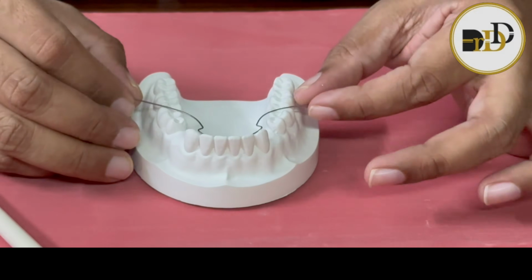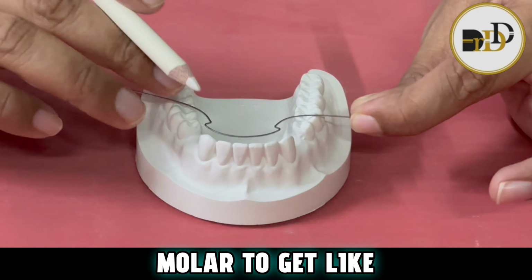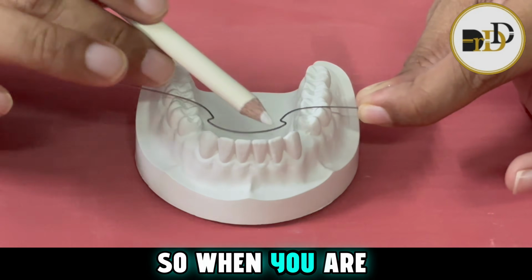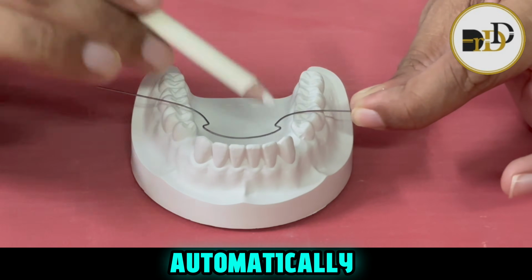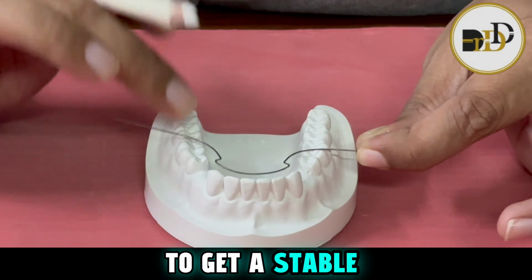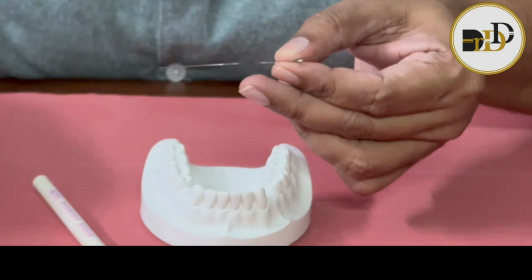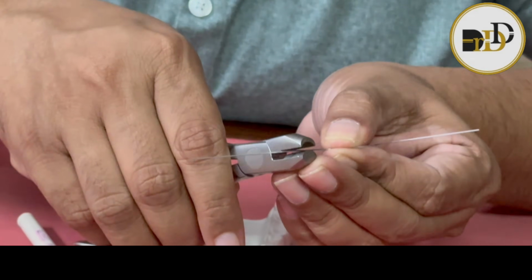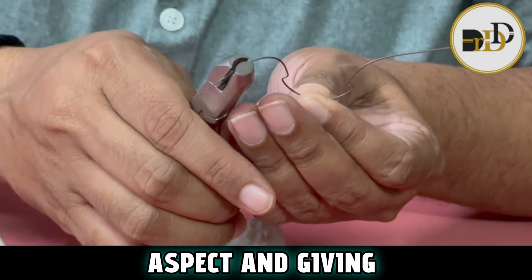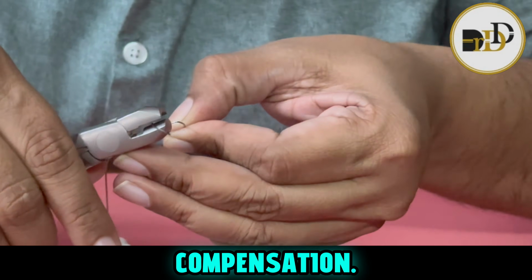When we see, it tries to make the molar go mesial in and distal out. So when you give a retraction force, automatically these two forces will get nullified and we get a stable position for the molar. At the same time, for the vertical bend, we place the plier on the broader aspect and give it like this as a vertical compensation bend.